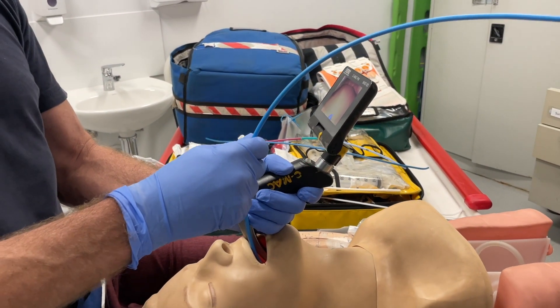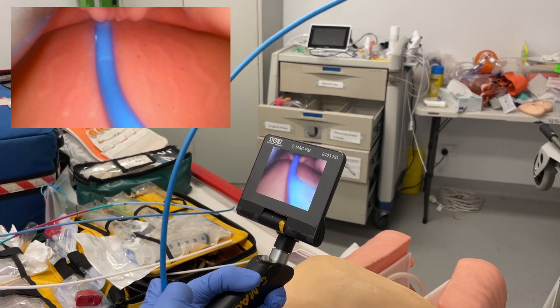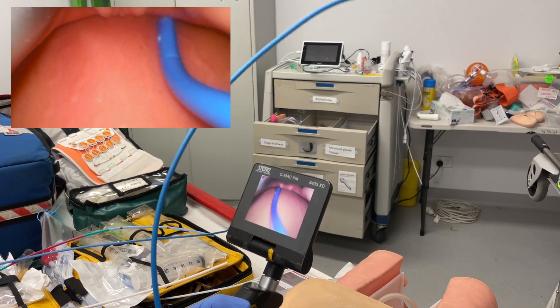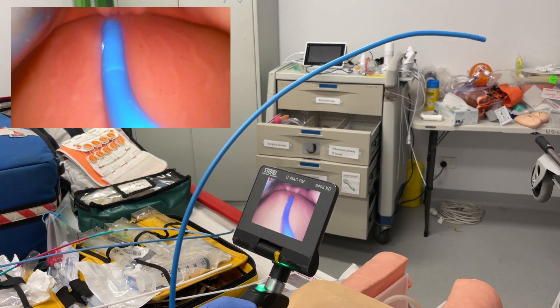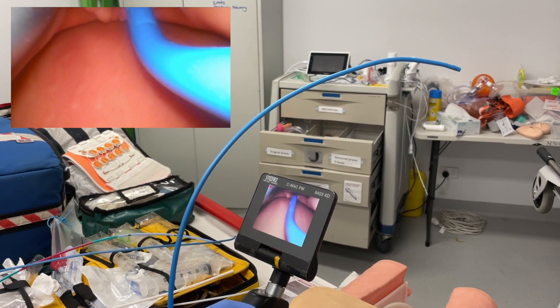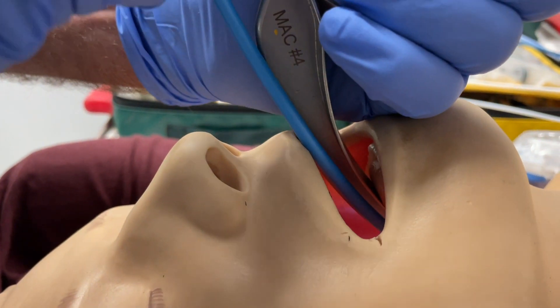The second micro skill is bouncing off the top teeth. Again, the bougie is not going into the airway — let's just make that more difficult. The bougie is going posteriorly, so I'm just going to push down onto the top teeth and see how that tilts the tip anteriorly. That goes in very easily.